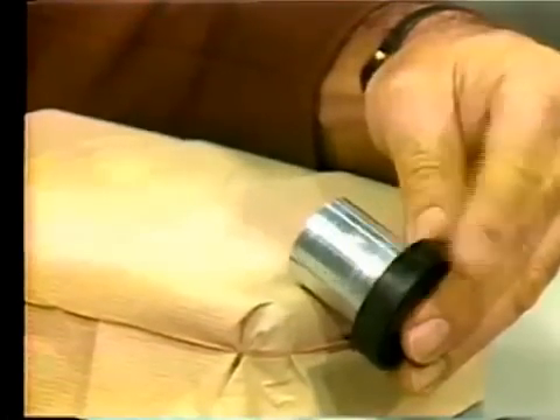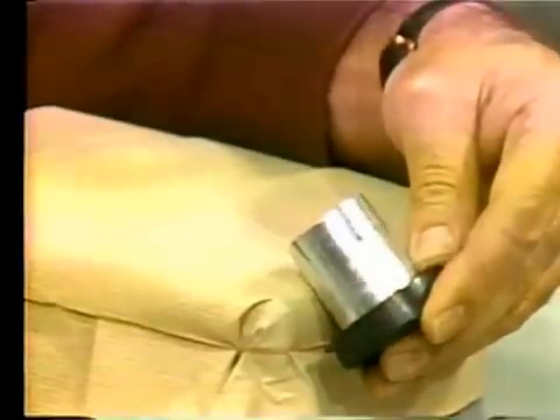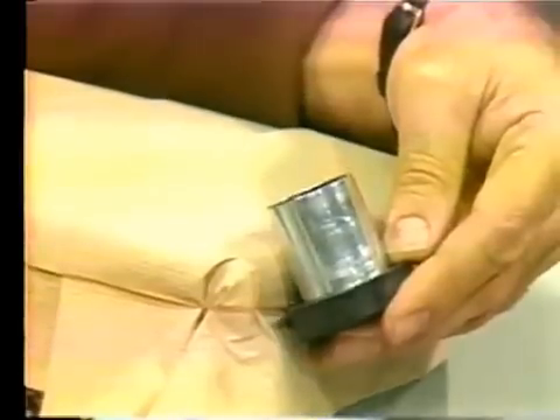This happens to be the hygroscopic technique, so I use hygroscopic equipment. I go ahead and put this metallic sleeve over the sprue former, and then fill the rest of the ring. You should notice that one should not hold the ring straight forward and fill it, because you will trap some air. The best way of filling the ring is to tilt it as much as you can, put the top of it on the vibrator, just like I am showing, and fill it until it completely fills, then try to straighten it up until the entire ring is filled. This way, the chances of trapping air while investing is very little.